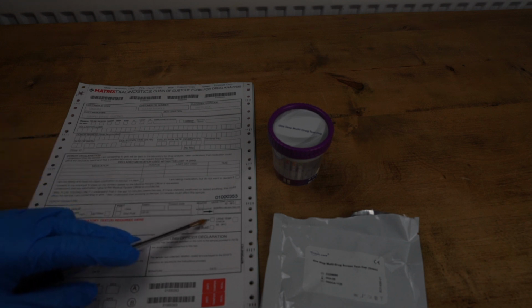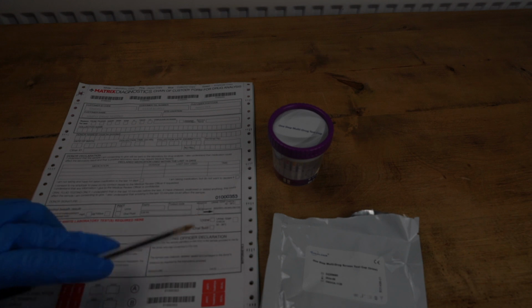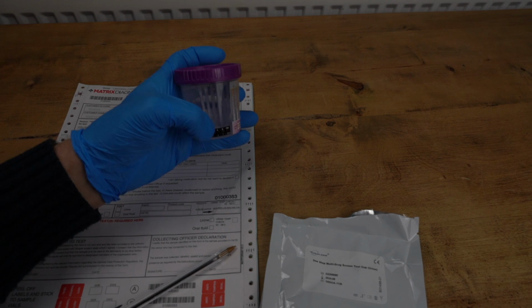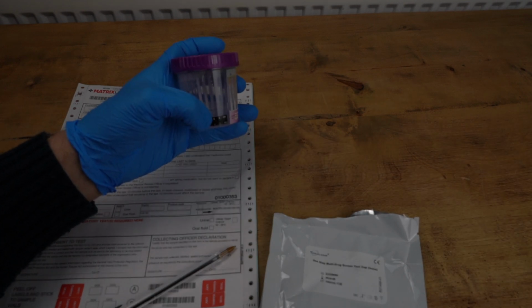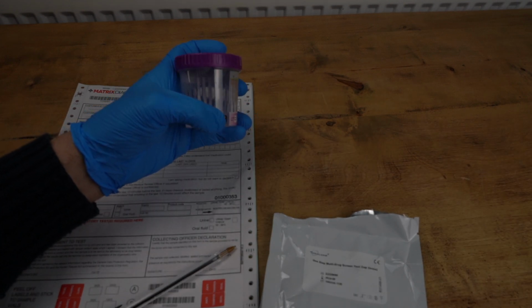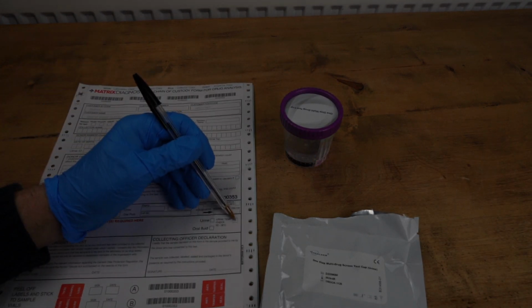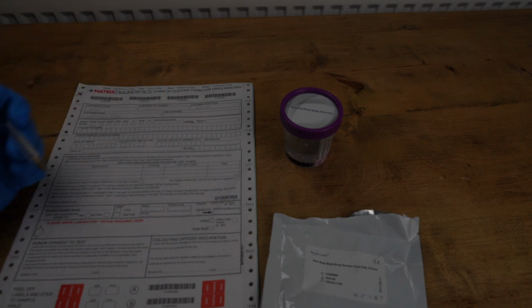To the right of that, if it's a urine test, you'll need to tick the box to say it's a urine test. After you've done the initial test and you looked at the thermometer, you'll need to say what the temperature check was, and that will normally be between 32 and 38 degrees, and if it was, you'll simply need to tick the box to say it's within those parameters.